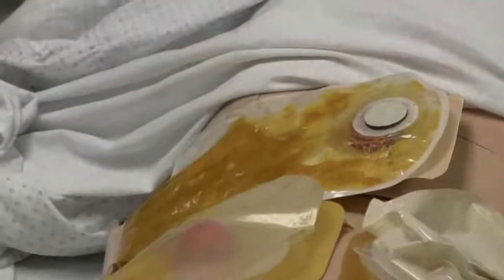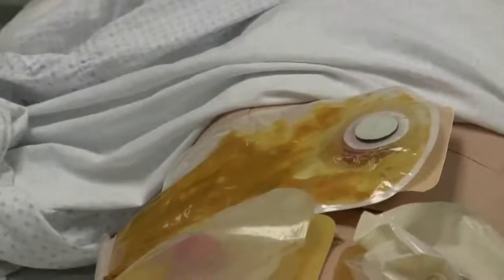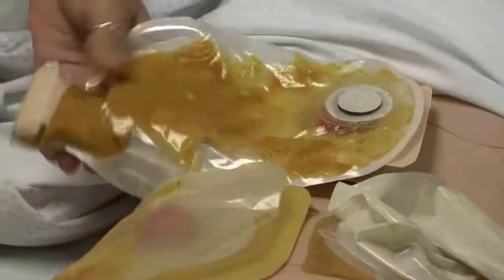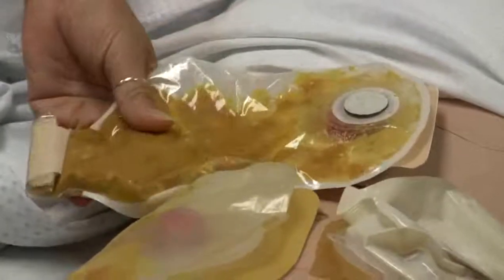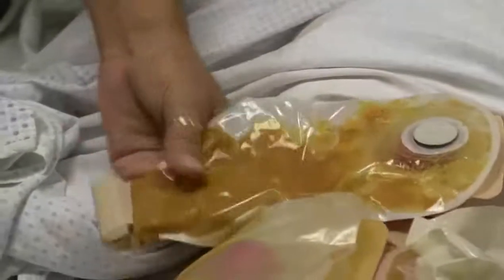This one is located a bit high but I had to have room on the mannequin. It's the transverse colon, and if you were documenting on your chart you'd say it's in the upper mid quadrant of the abdomen. The effluent in here is getting to be more semi-formed to formed — that's what we'd expect there.